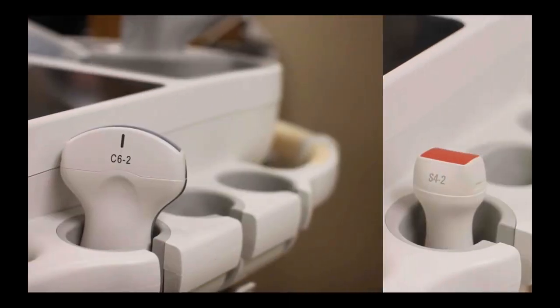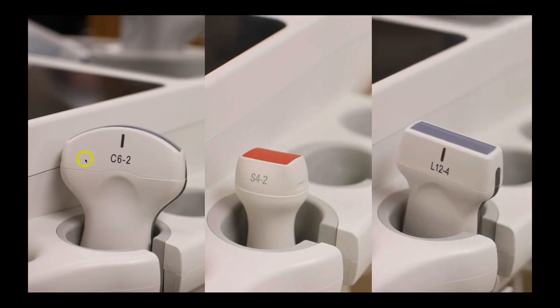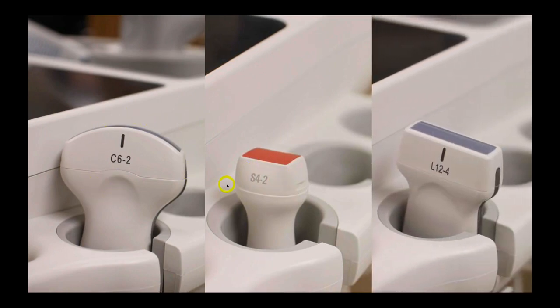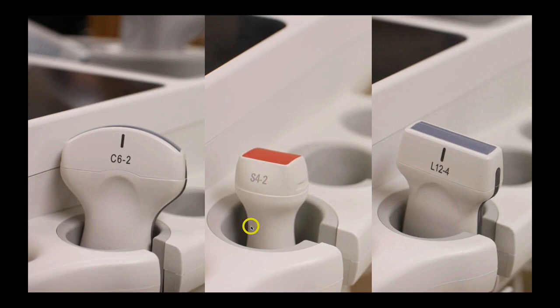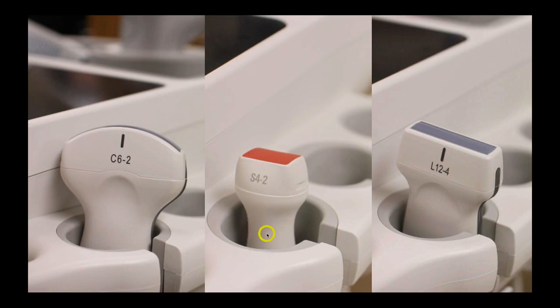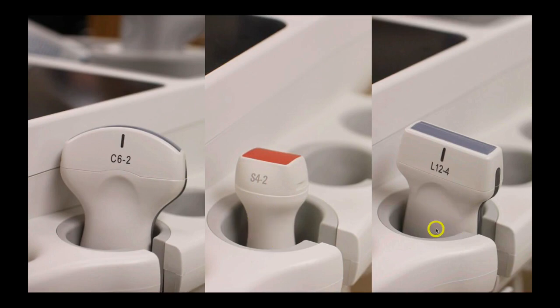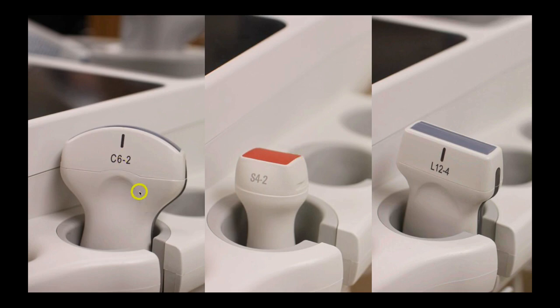As far as probes go, I usually use the curvilinear transducer for the whole exam, but you can use this one for the abdominal examination. Additionally, it's usually easier to see the heart with a phased array probe, and you can use a linear transducer for the evaluation of pneumothorax, although the curvilinear will get you views for all of the examination.